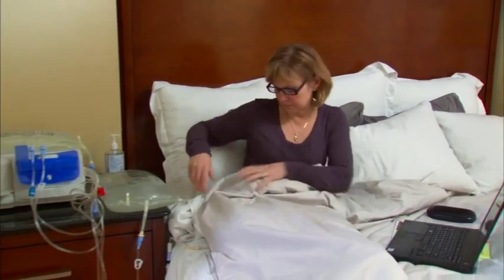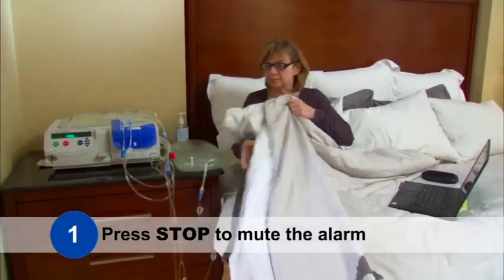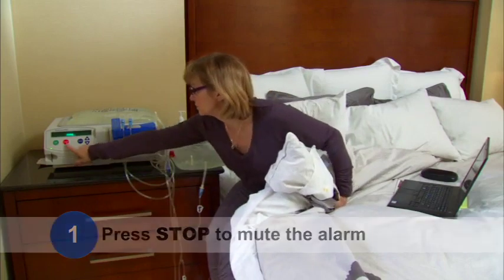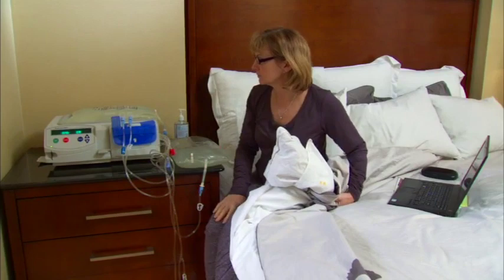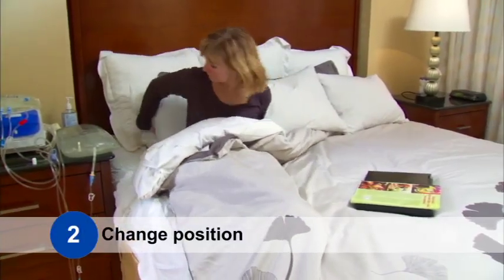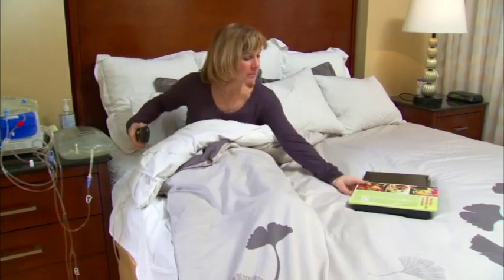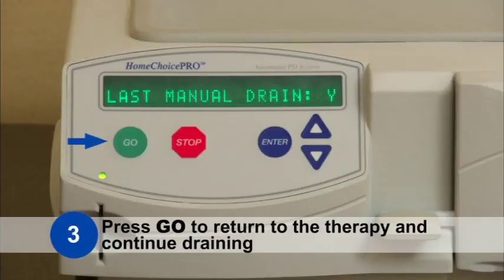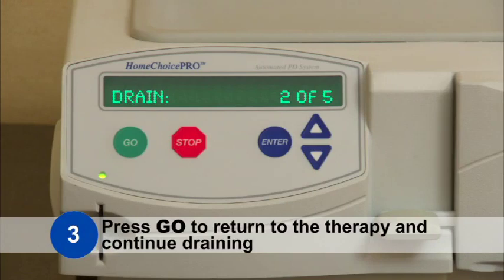Step 1. Step 2: Change position. Step 3: Press Go to return to the therapy and continue draining.